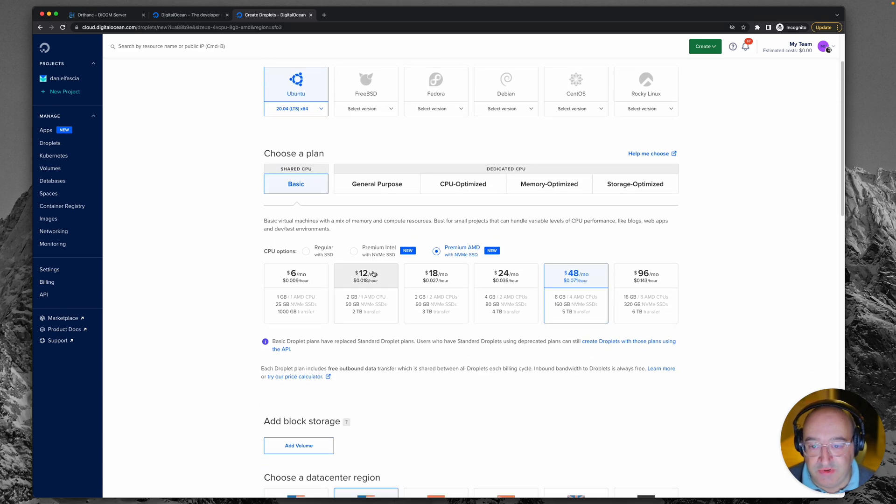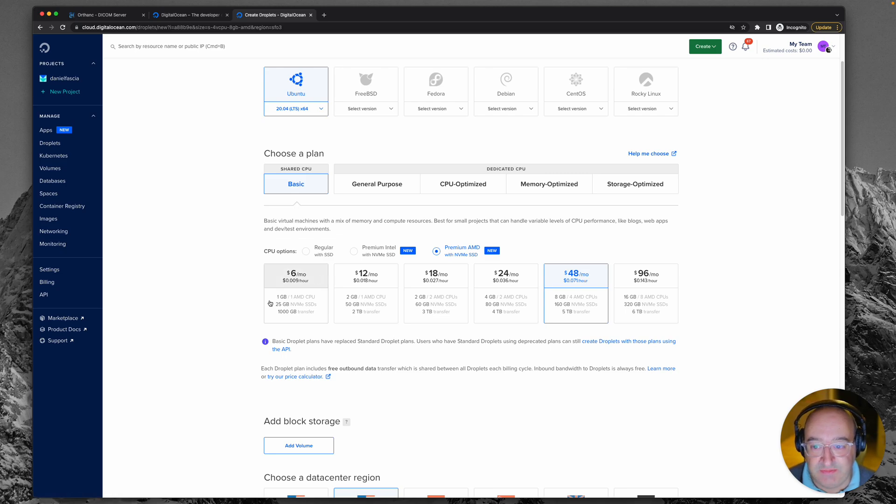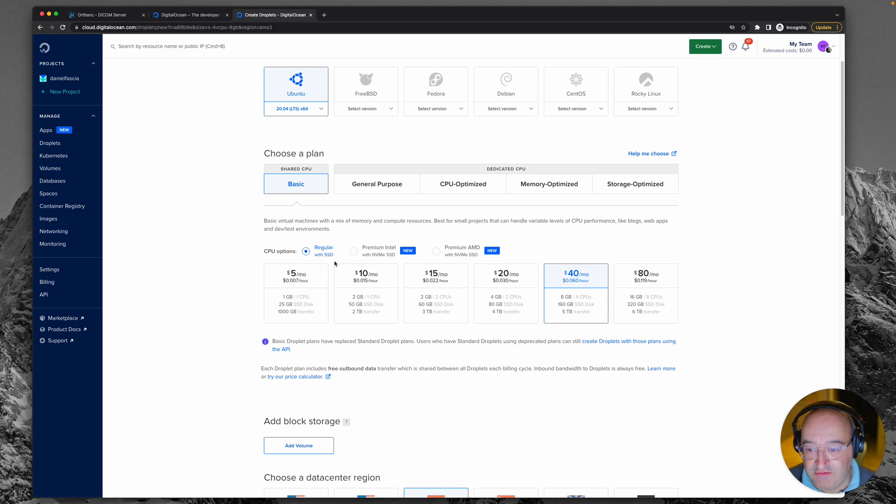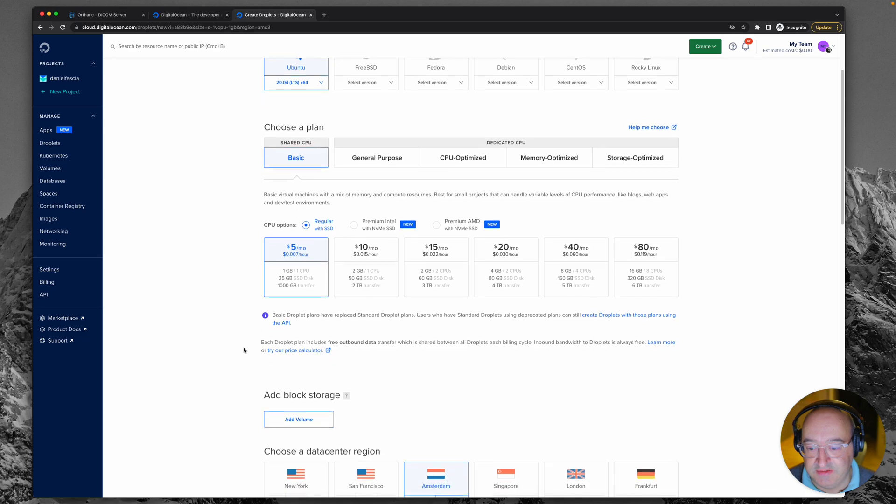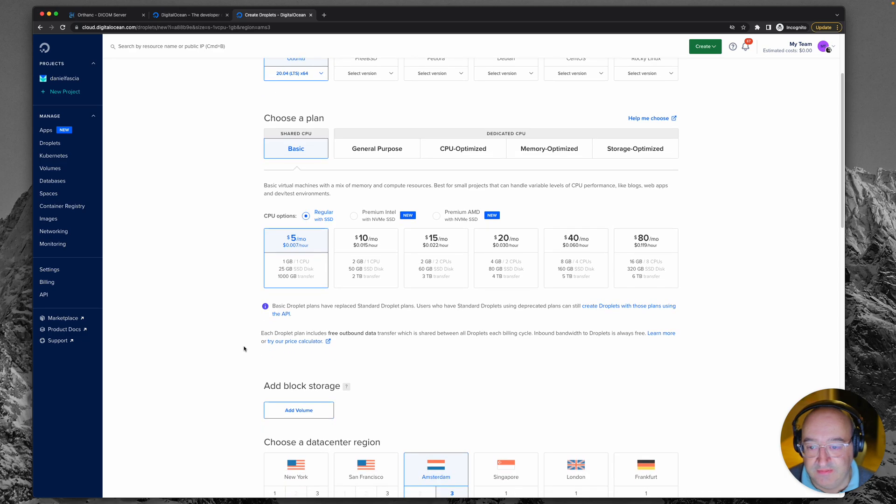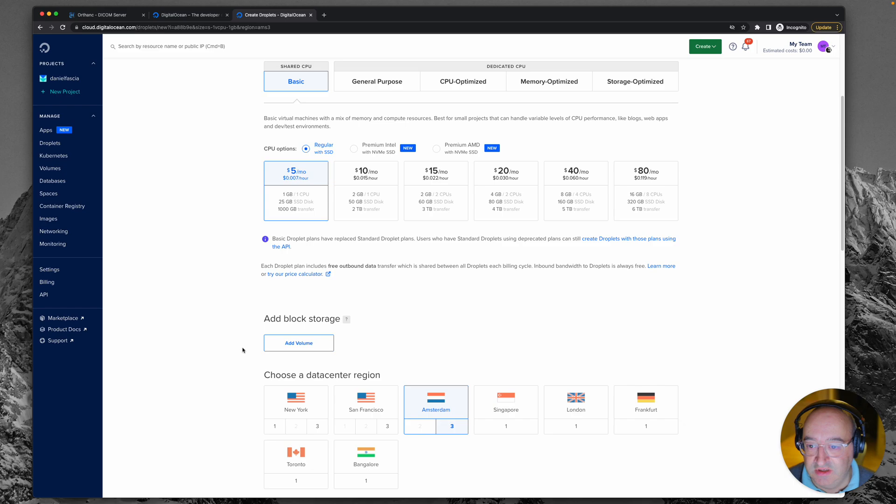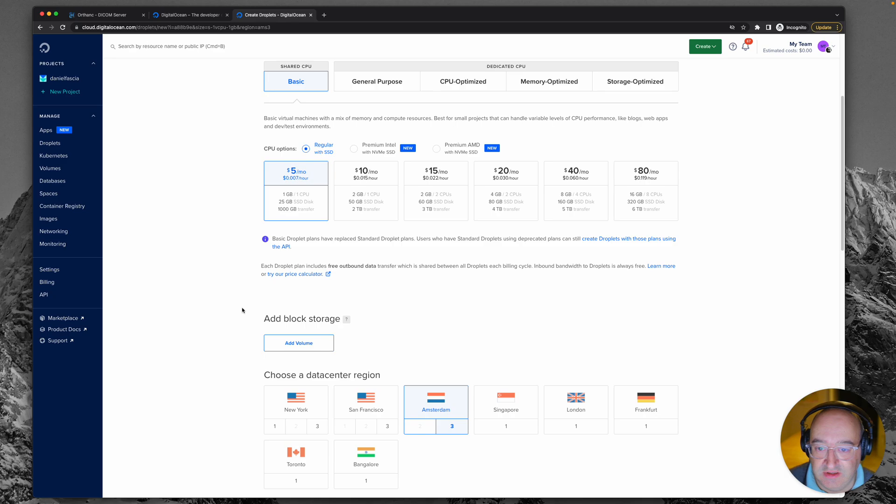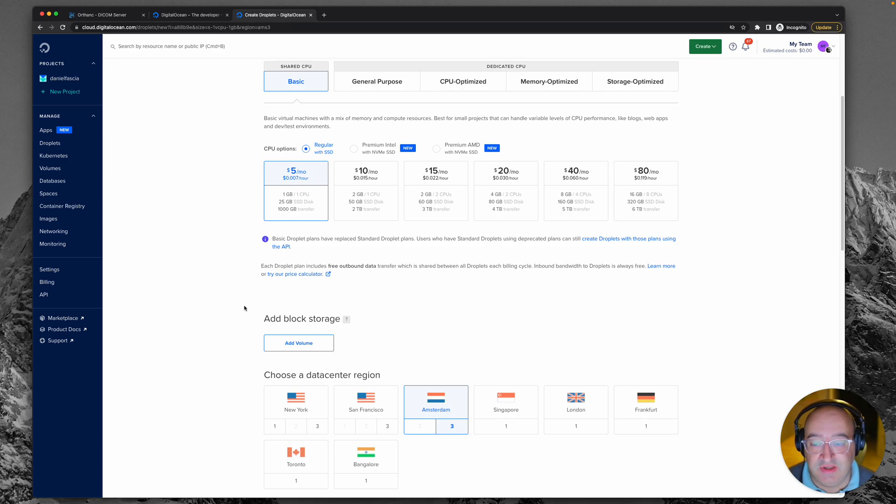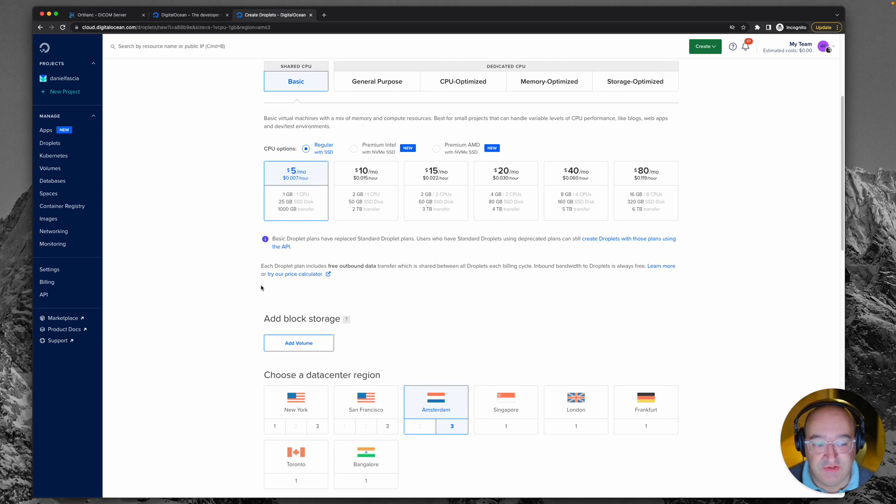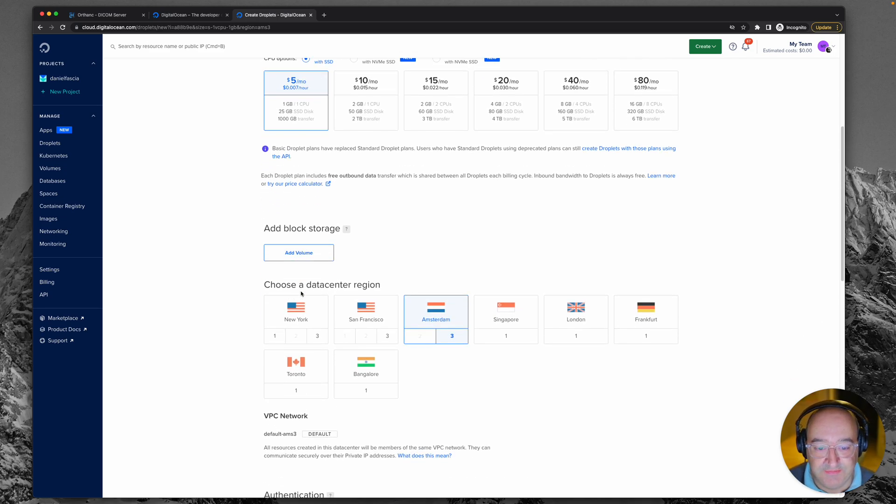Next we'll stick with a basic shared CPU, and I'm going to choose a regular SSD so that it's the cheapest $5 a month droplet. So $5 a month for a PACS server with one gig of RAM and 25 gigs of drive, that's not too bad. You might find if you're using this for something more serious then that's not going to be anywhere near enough storage, but that's a problem for later.